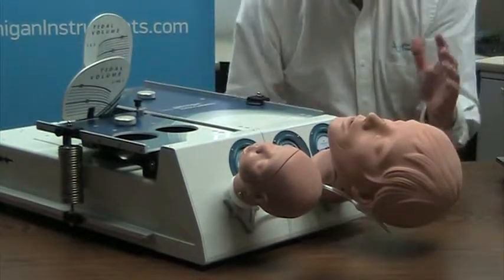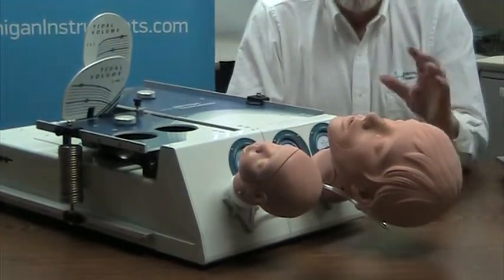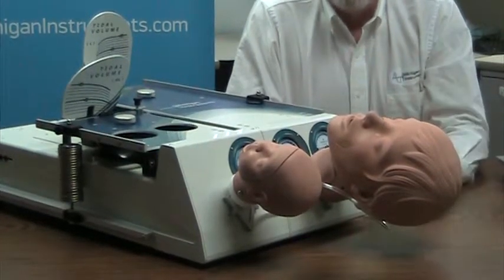We see the head simulation module as a valuable accessory to the lung simulation products.